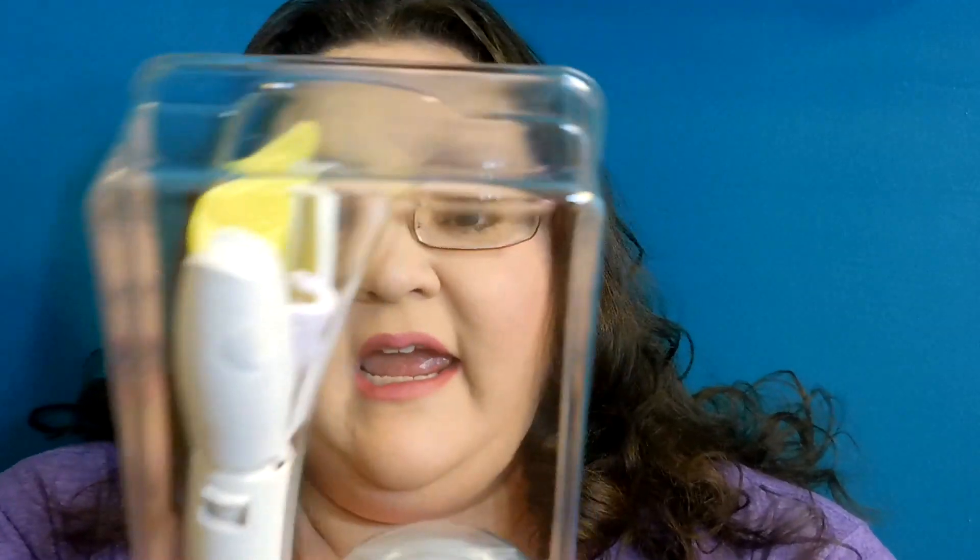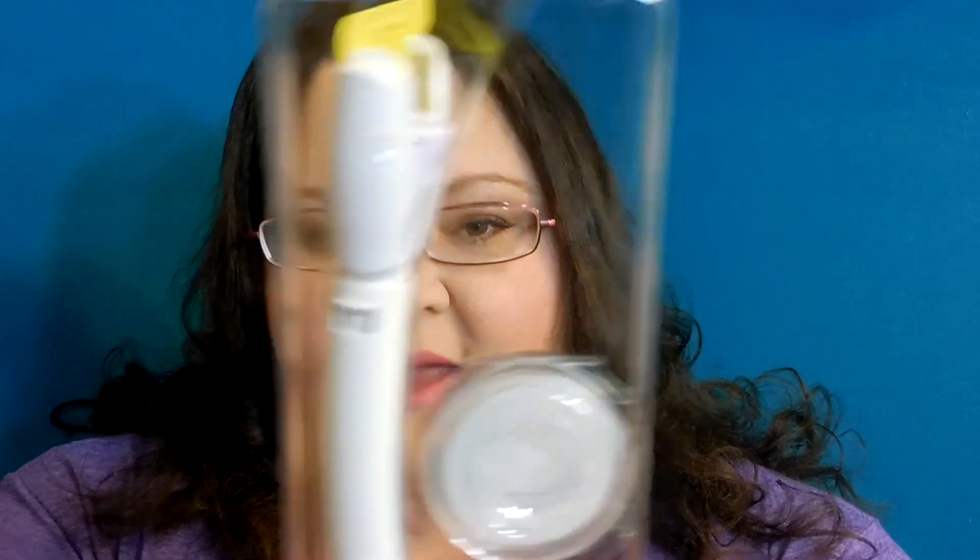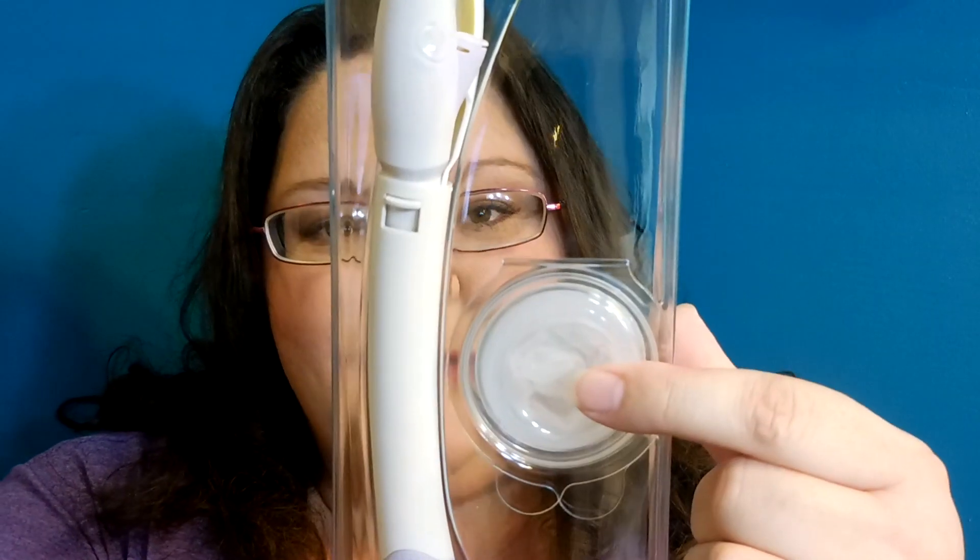Here we go. When you open your Stork, you will get this. It's got some paperwork inside the box as well, but this is the actual device. So it comes with two parts — it comes with the applicator here, and this is called the Conceptical.